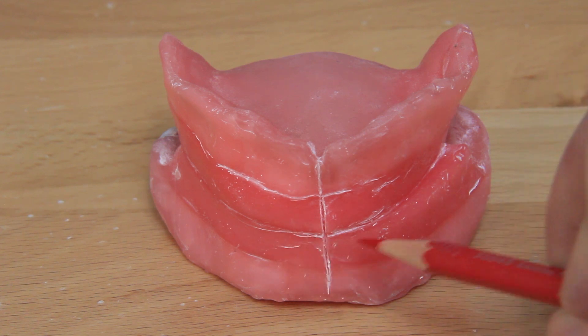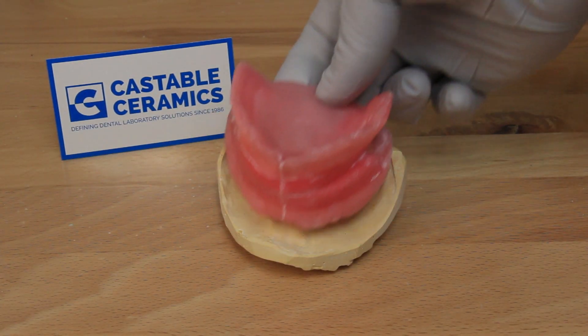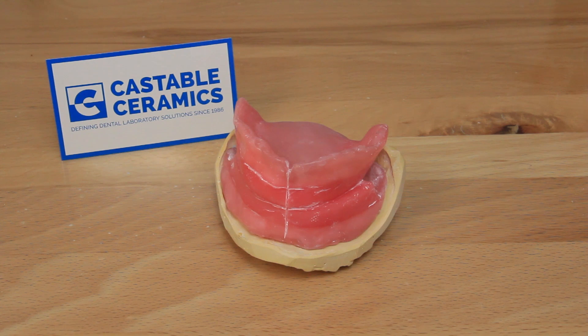This wax block ensures the lower jaw is positioned correctly and will be used as a guide when positioning the teeth later on.